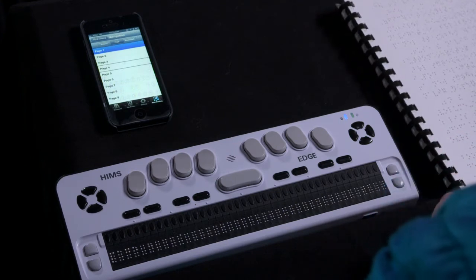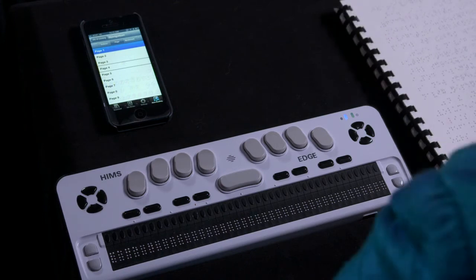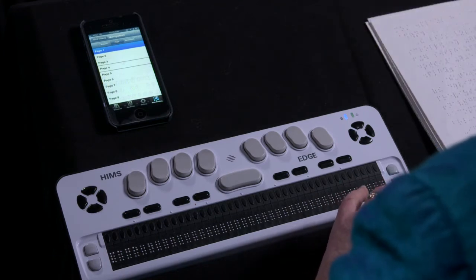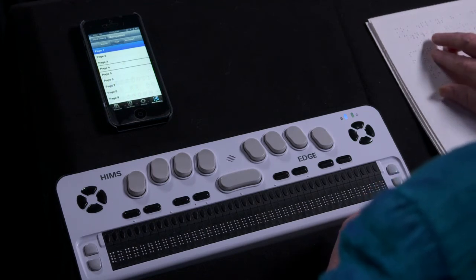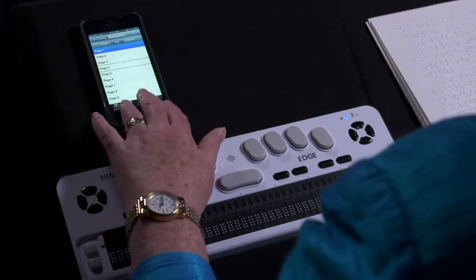Panning right can be done with .5 plus spacebar on the Braille display, but most Braille displays have a dedicated key to perform this action. The lists of volumes, pages, and bookmarks can be scrolled through by groups of items by doing a 3-finger swipe up on the iOS device.